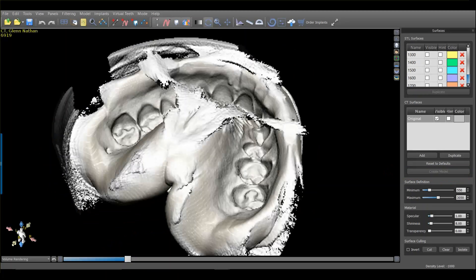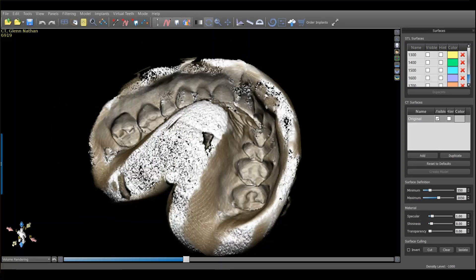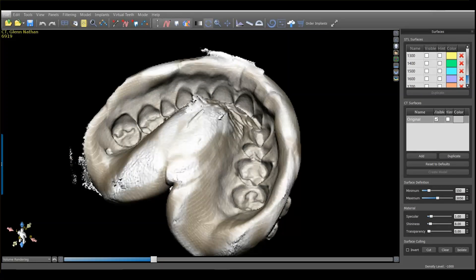To show how density affects things: if I go too far to the left, I start to get a lot of noise and distortions on the impression. If I go too far to the right with the density slider, we start to get a moth-eaten appearance. A model generated from either of those two extremes is not going to be accurate enough to build a guide on — it's going to give you problems. Somewhere in between those two there's usually a sweet spot where we can get a very accurate representation of reality.